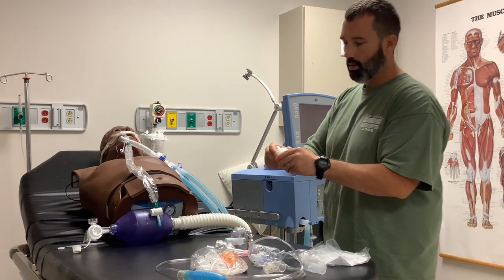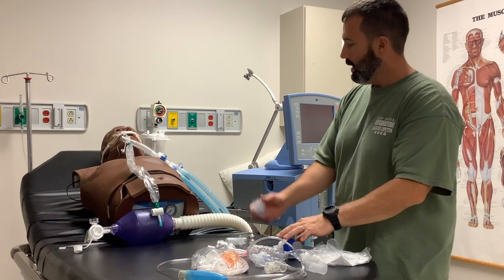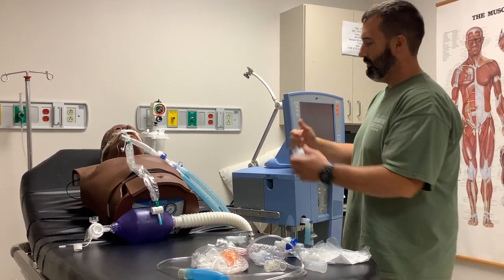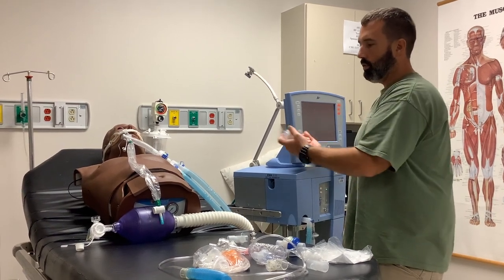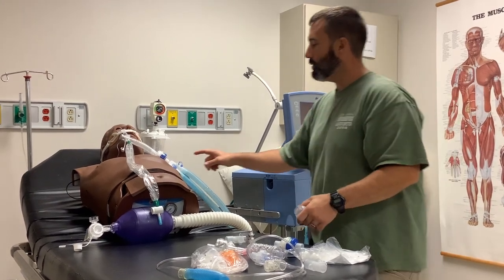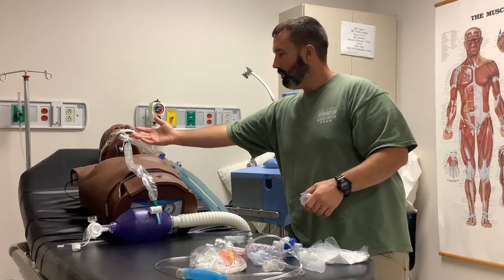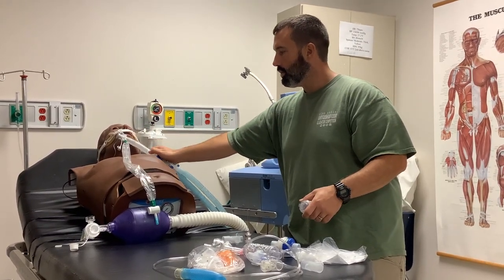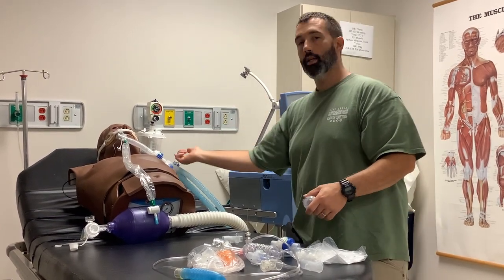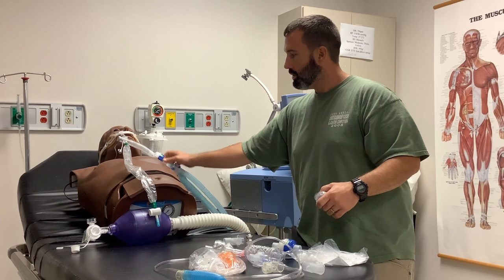So just be aware of that. If you have these switchable HMEs, utilize them. Now, when putting the circuit in, you can put your ventilator in standby, but what I typically like to do is let it deliver a breath and break it quickly since I can put it back in relatively quickly. Anytime you're breaking a circuit with an HME, break behind the HME, because there's going to be moisture and condensation there. If you break the circuit right here without putting the ventilator in standby, you're going to get sprayed as soon as it sends a breath out.